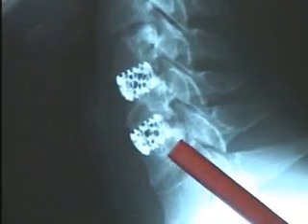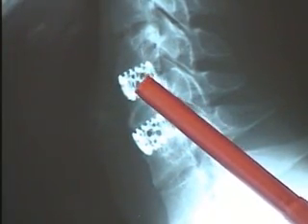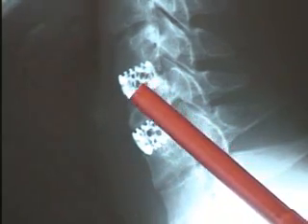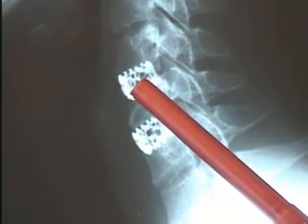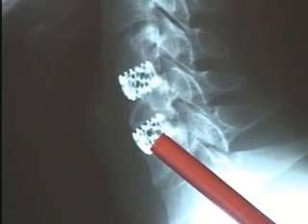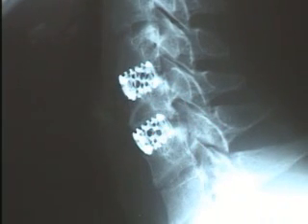If we look at a couple of x-rays, we can demonstrate on a two-level fusion procedure what this looks like. As you see in this rather magnified x-ray, this patient has had the placement of a fusion cage or a small hollow screw into a disc space between C4, C5 and C5, C6, in which the bone is shaved into the inside of the screw and becomes the focus for a fusion procedure that will take place over time.